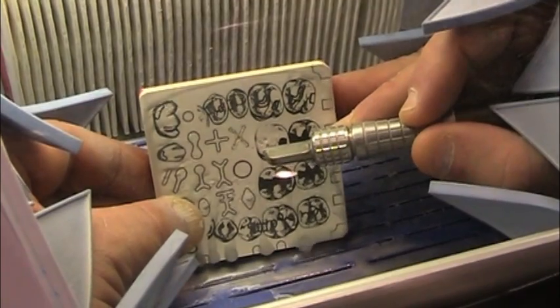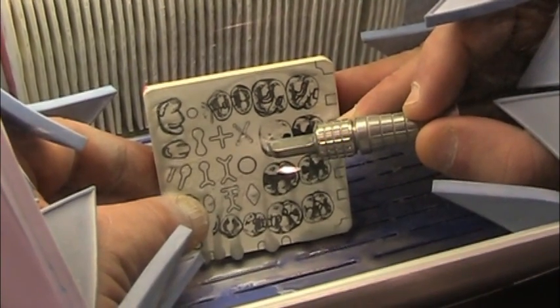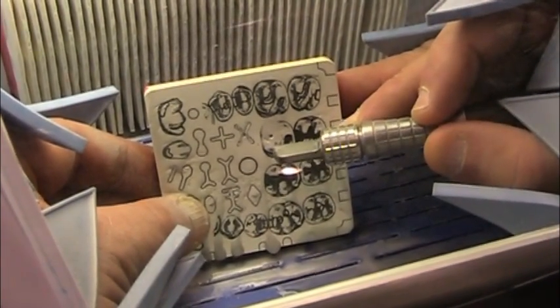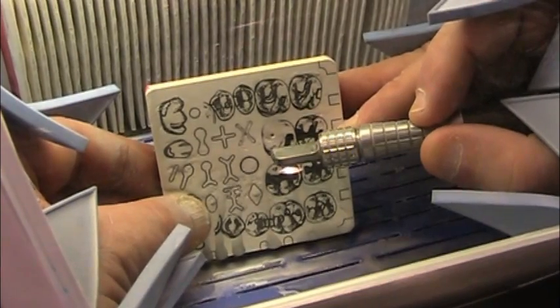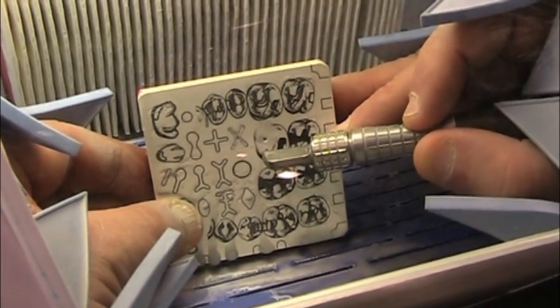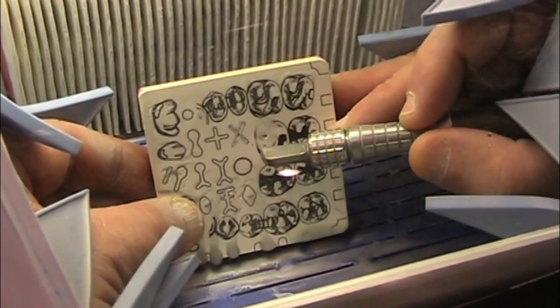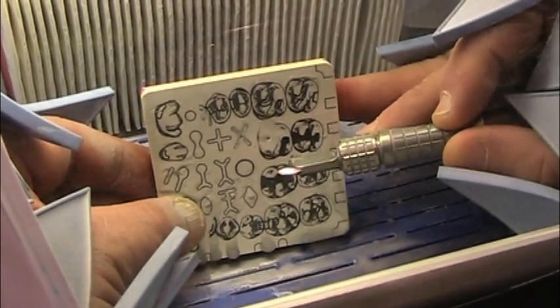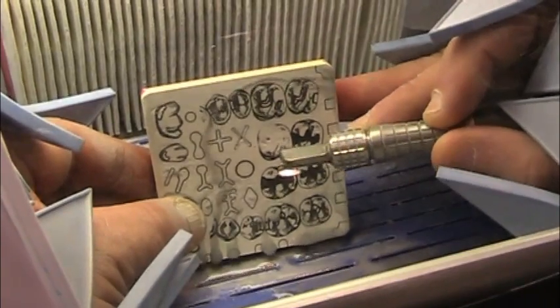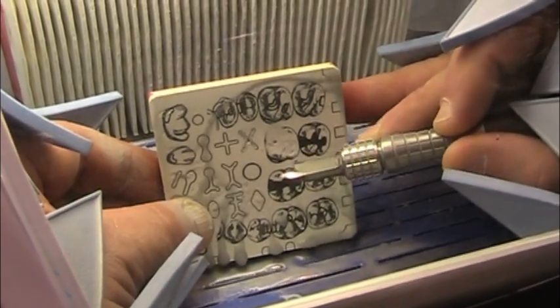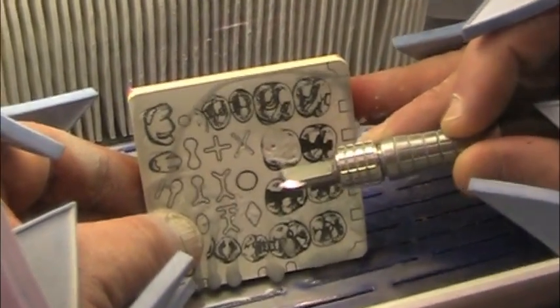Or if you want to cut, you get in and hit it. You have much more control than just the way this has been set. This is set with very strong air pressure on this particular one. You can back it down so that you can just dust. I didn't realize how strong that was because this is the first time I've used this particular unit. But it will cut fast and hard to give you a preparation.